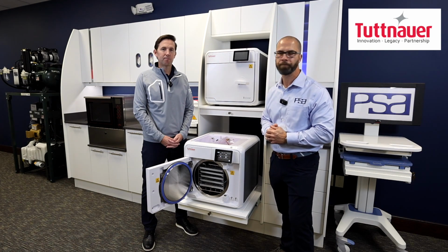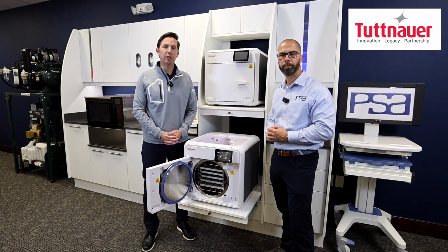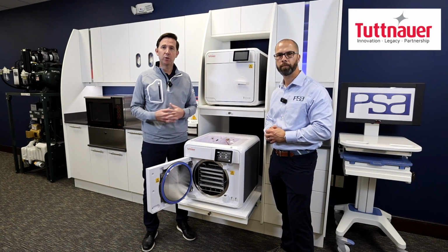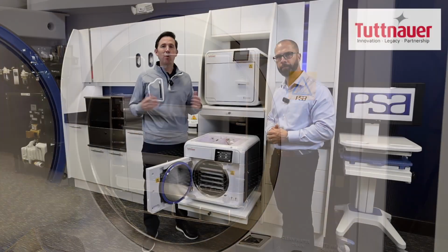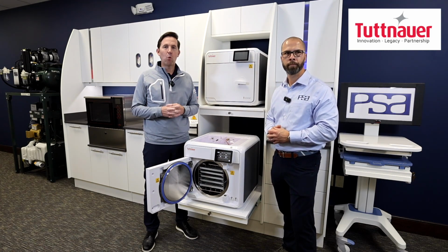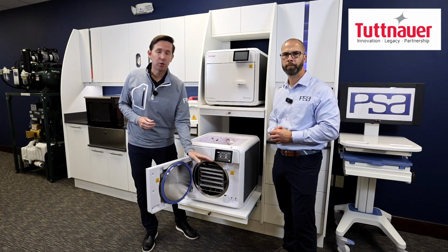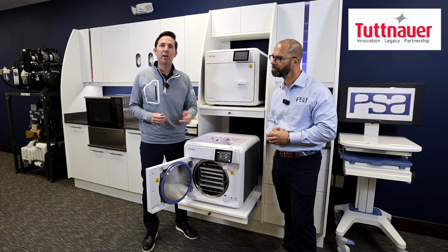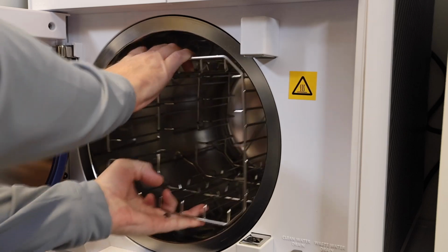As we're talking about the chamber, the T-Edge is going to come in two different sizes, the 10-inch and 11-inch chamber, as well as complemented by 110 volt and 220 volt options. The chamber itself includes the rack. As a former equipment specialist in other models I would sell, I'd always forget to order the rack for the cassette option. What's significant about this is it'll hold 5 trays for your pouches. And then all you need to do is rotate it 90 degrees and now it's cassette compatible.